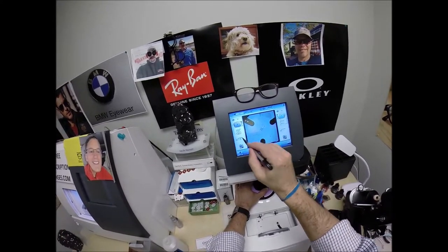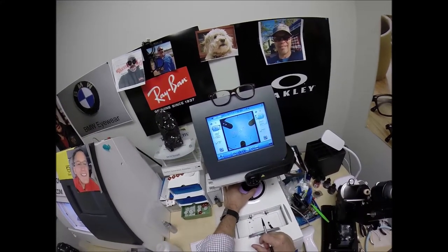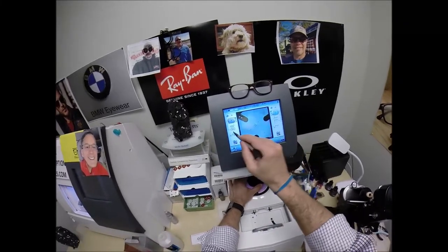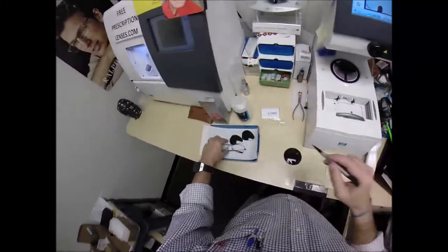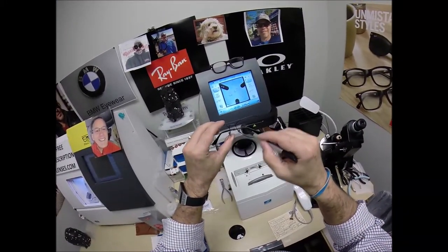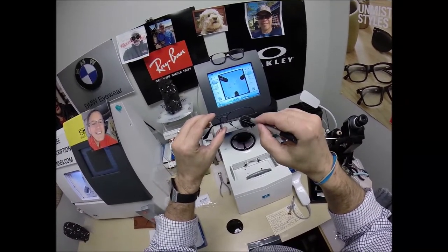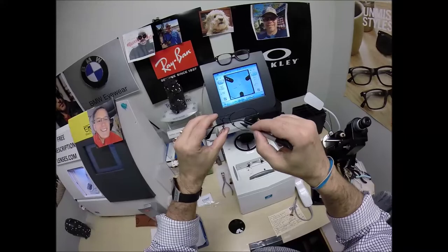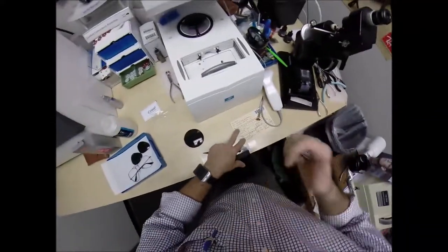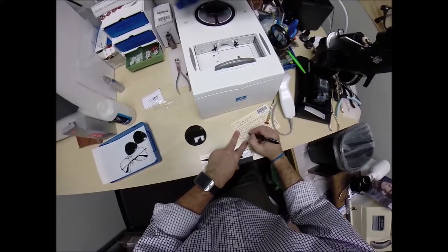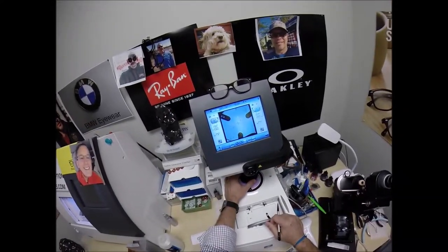Let's go up one more. Let's go ahead. Against my better judgment. The reason why I say that, we measure the optical center height, but it's not directly down. You actually want to go to the middle of the frame. Your eye is just going to be right here. But I want to move it up enough where the bifocal isn't cut off. So I'm going to measure, when the machine's measuring, it's measuring it from this point, not directly where the frame is sitting. So I'm going to give you an extra millimeter. Boy, I'm generous there. I'm just giving away millimeters like it ain't nothing.